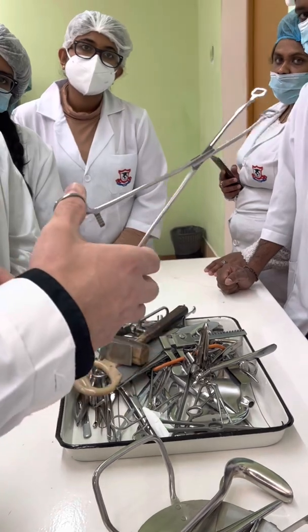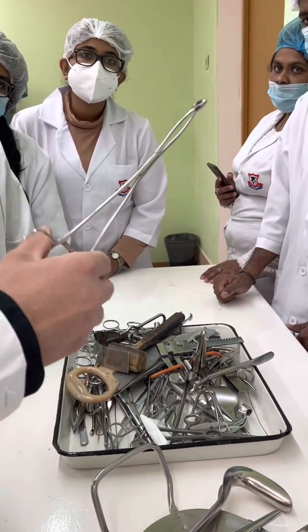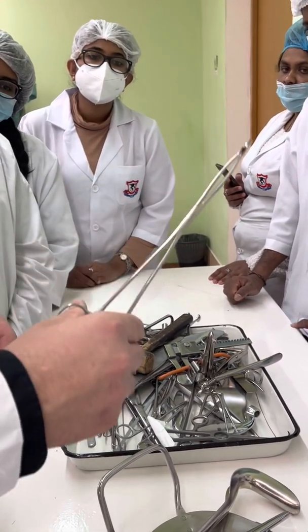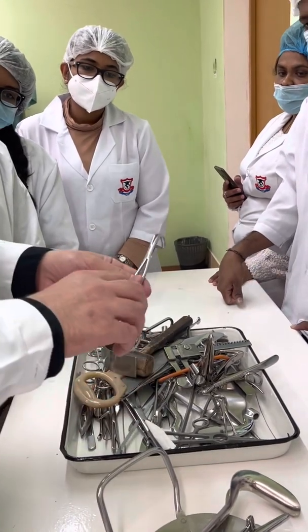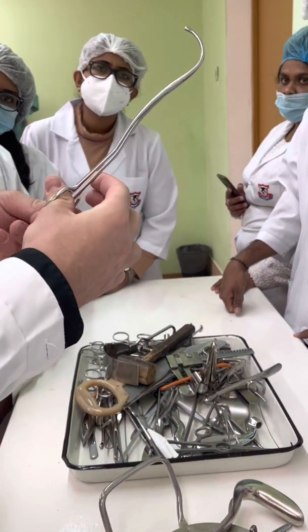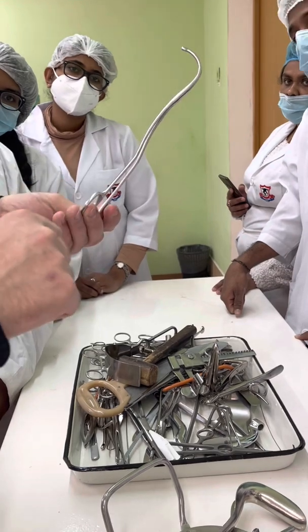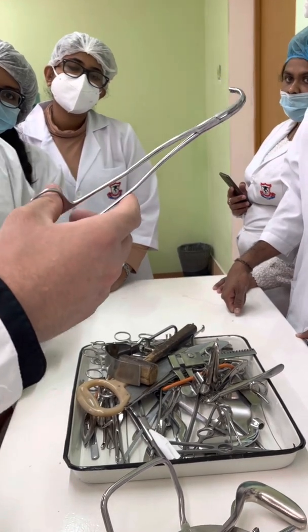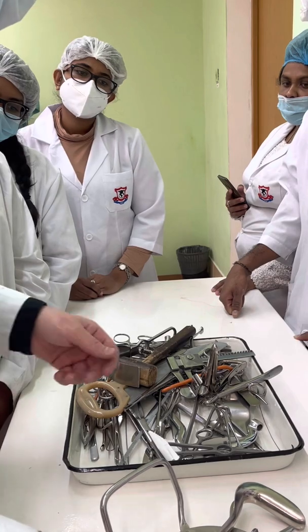Here, forceps for the prostate gland. Usually it's quadrate in shape. Forceps for prostate gland. Here, dissector without lock. Dissection is a separation of tissues by blunt means, without incisions.